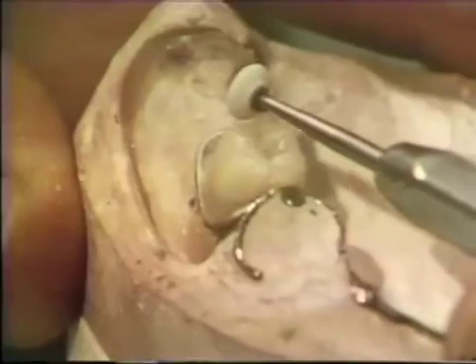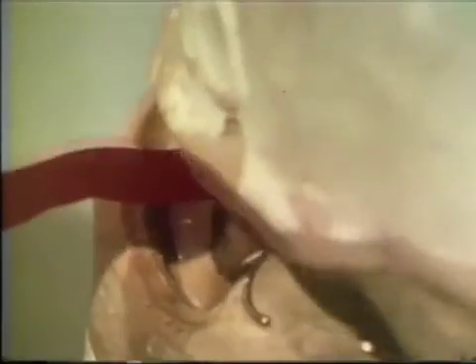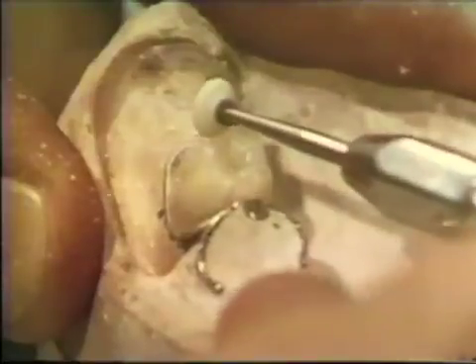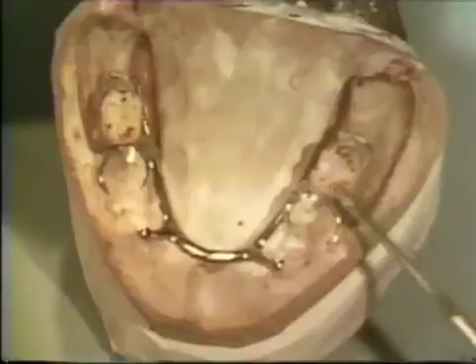The occlusal surface is then adjusted to the template. The use of ribbon rather than paper prevents abrasion of the stone surface. The final closure is accomplished by reducing the occlusal surface contact. This reduction is carried on with small stones until a uniform equalized contact is achieved. This static articulation of the substitute teeth with the composite dynamic record will achieve an articulation in harmony with all centric and eccentric positions.